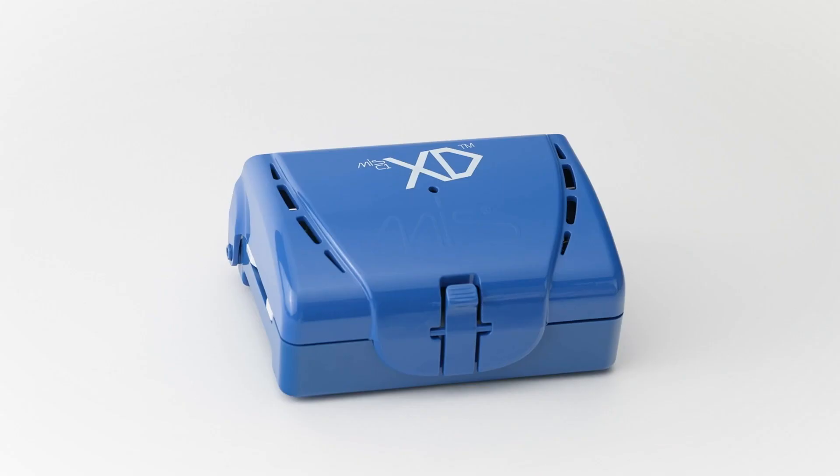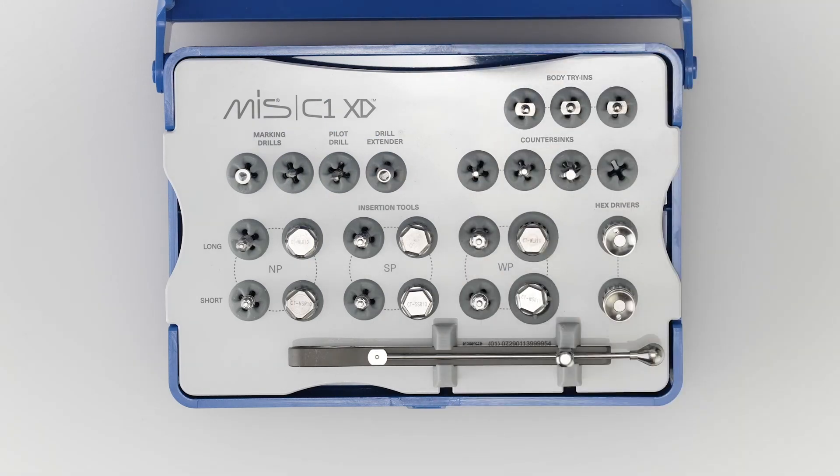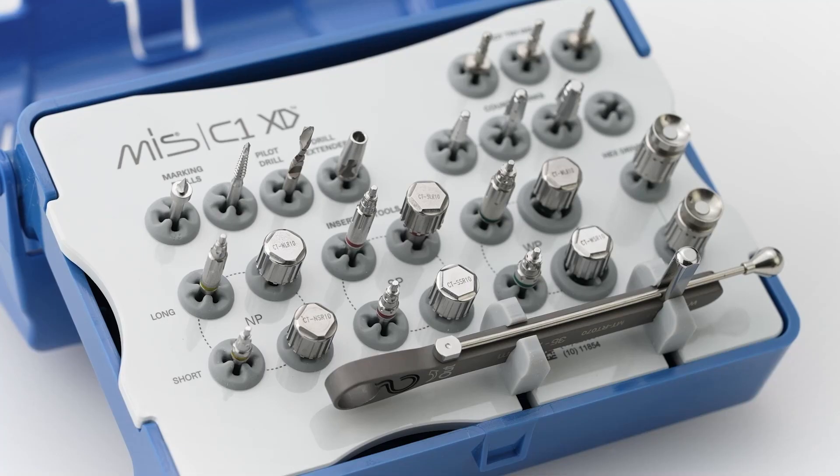The XD placement set includes all the essential instruments required during surgery. Marking drills, 16mm pilot drill, drill extender, body try-ins, countersinks, insertion tools, hex drivers, and a surgical torque ratchet.